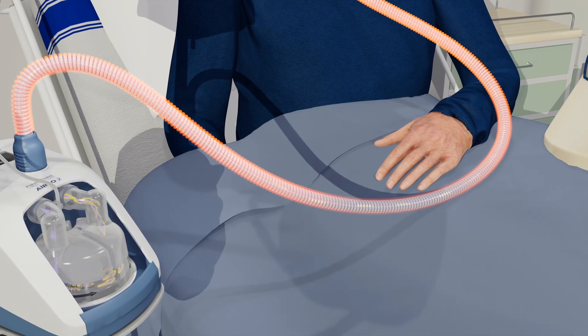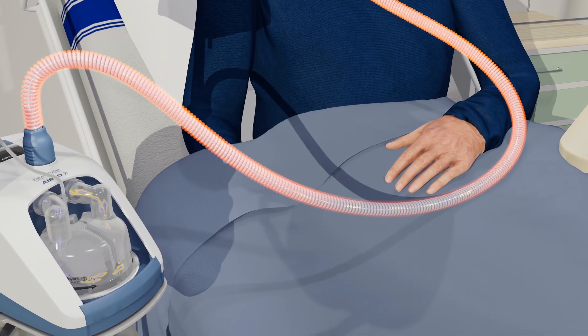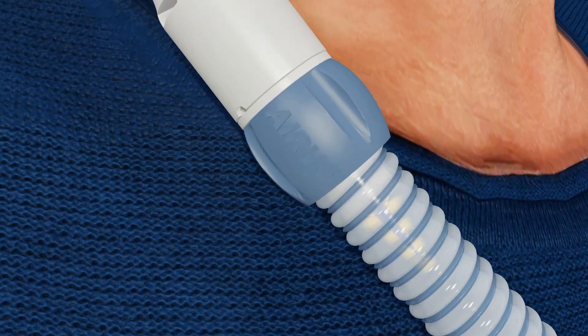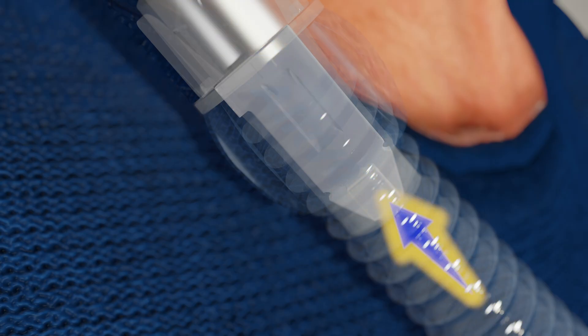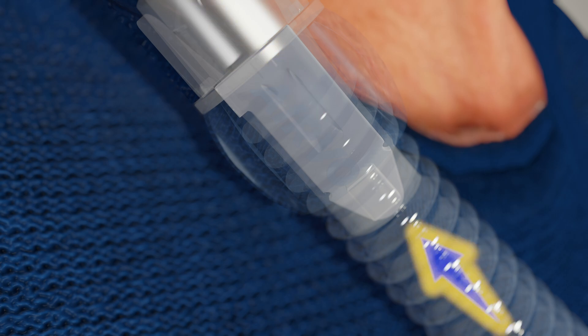A heated wire inside the tube warms the humidified air to prevent condensation, maintaining temperature and water vapour content all the way to the patient. An integrated sensor at the end of the breathing tube allows precise control of the temperature and humidity of the respiratory gas supplied. No external probes or sensors are required.